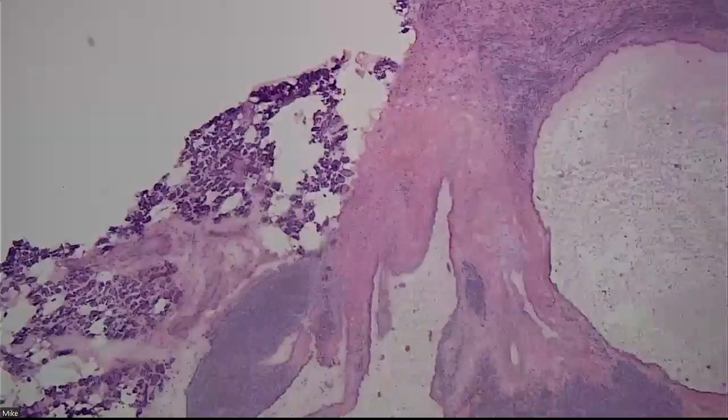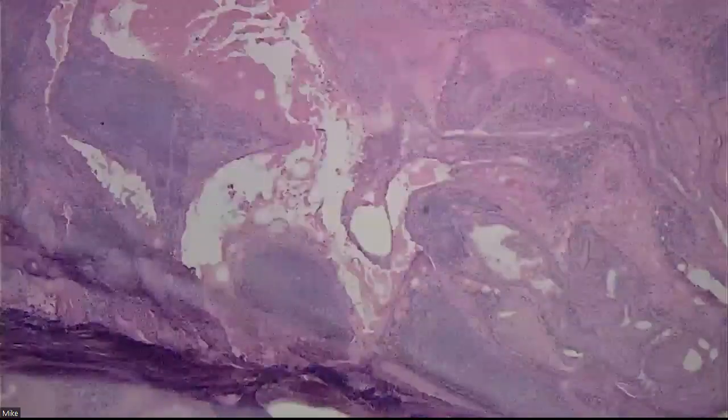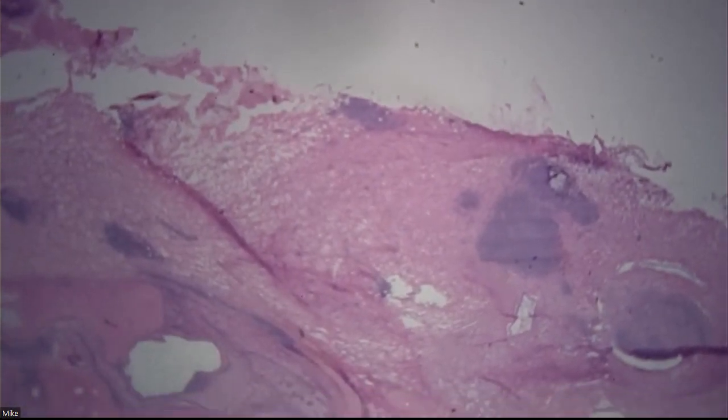72-year-old male. Pretty good. I know, we're doing all salivary frozens because you'll see them, and I want you to understand how to report them. And this is probably one of the most common ones you're gonna see, just like that sinonasal papilloma we had yesterday. You're gonna see this on frozen.